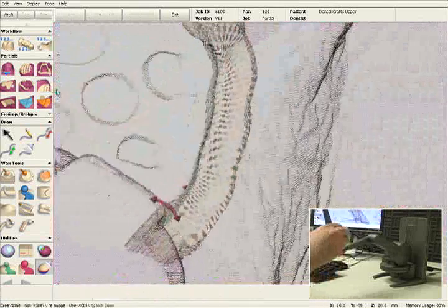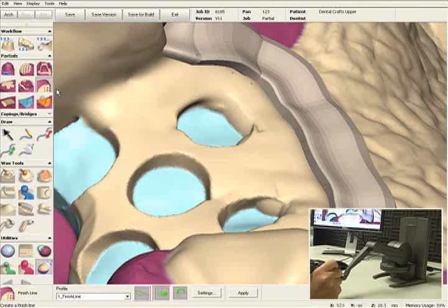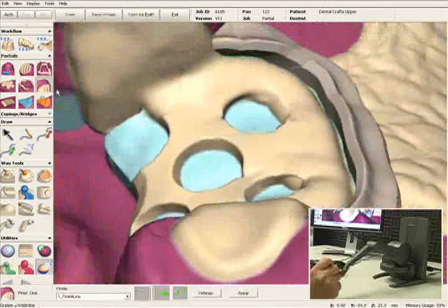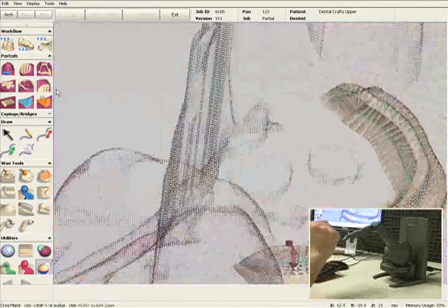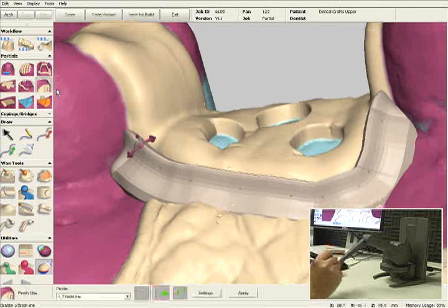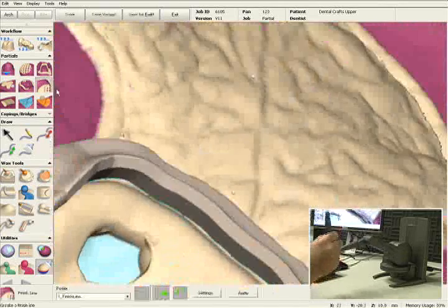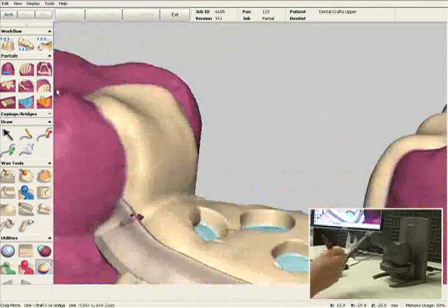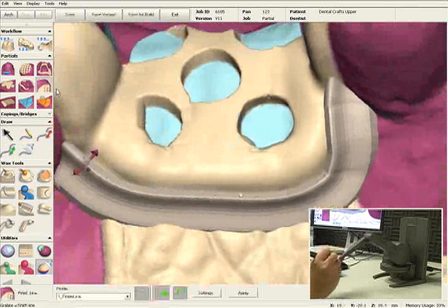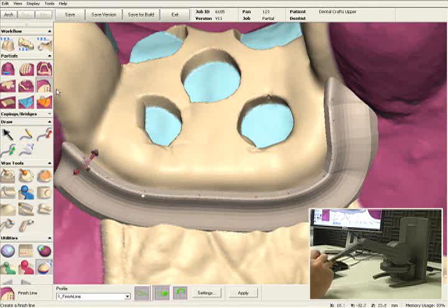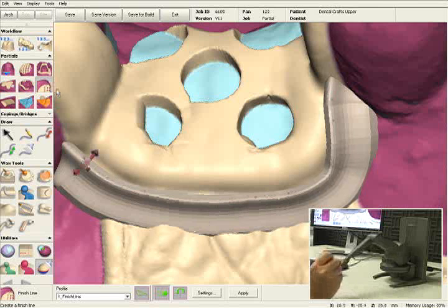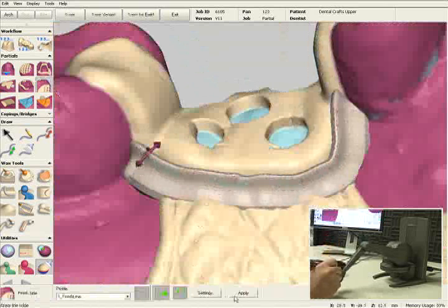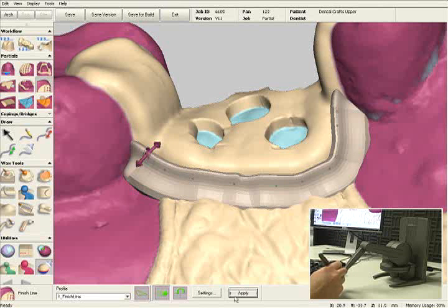I'm going to move it forward a little bit and rotate it. You can see that you can have more of an undercut or less of an undercut depending on how much retention you want to add for the resin. The lingual side of the finish line has a nice smooth finish so it will blend in with your major connector, and the buccal side has a nice flat finish that will hold your resin nicely once it's applied. You can also change the shape of your finish line because it's still in 3D preview — you can grab any one of these points and move them around. Once you're happy with the way it looks, click the Apply button and the 3D preview will be turned into digital wax.